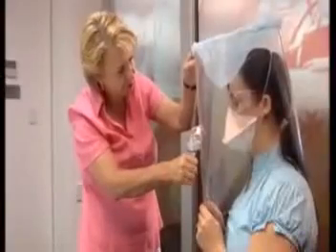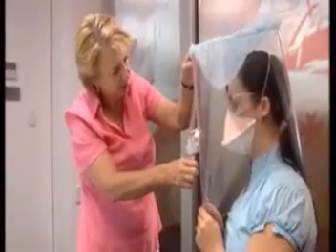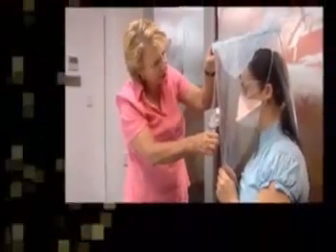A person may be able to achieve a successful fit-check with a selected mask. However, this may not translate to a passed fit-test. There are two fit-testing methods identified by Standards Australia.